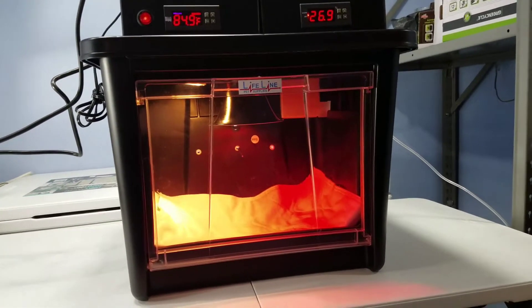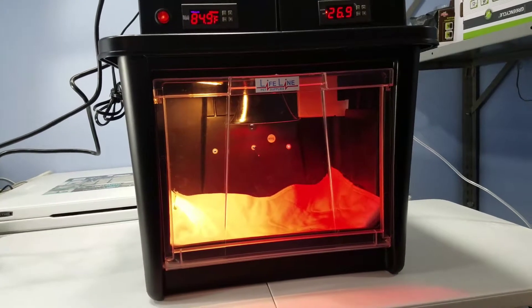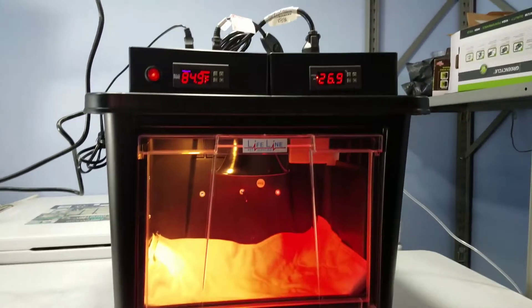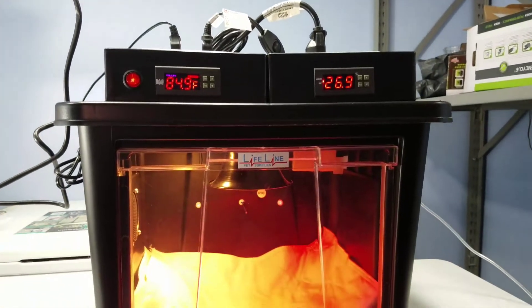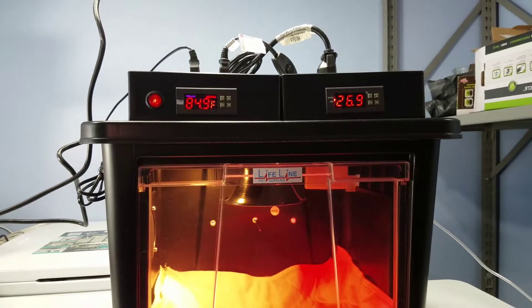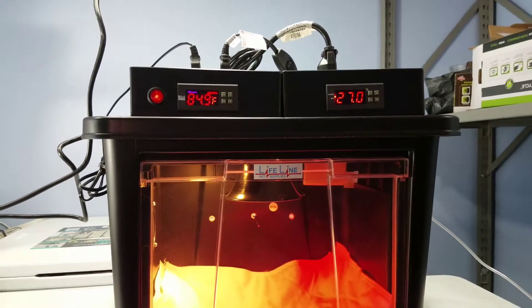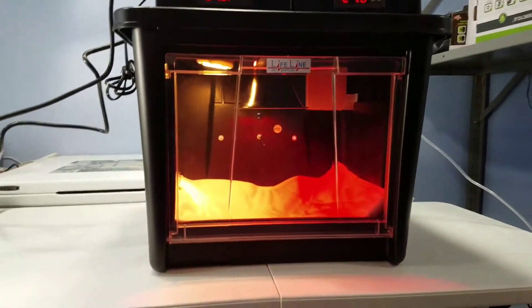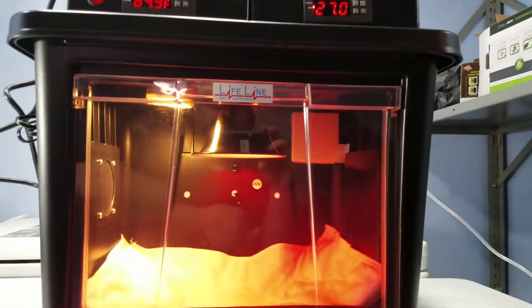It has that whole area to humidify and fill up and you can already see it's starting to come up a little bit here. It's already come from about 26.2 or 3 up to about 27 and hopefully that'll get up into the nominal range. If that still isn't enough, you also can use the mounted cup holder inside the unit there.